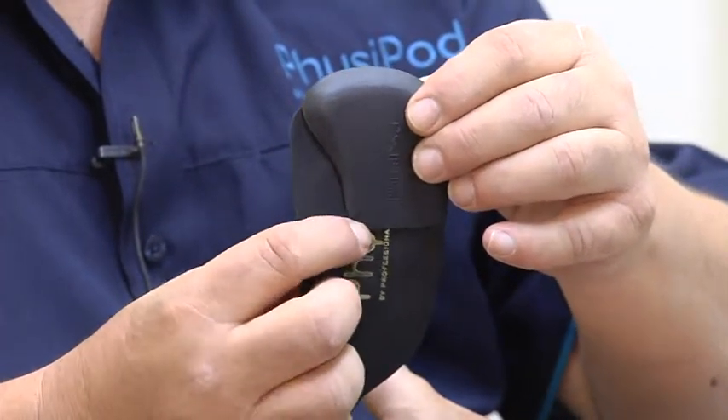On a cross-section you've got four and a half millimeters of thickness. What we're ideally wanting to do is capture the lesser forefoot and lift and splay so the pad takes the load of the forefoot instead of the joints themselves.